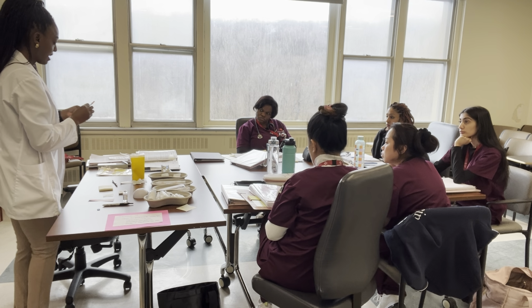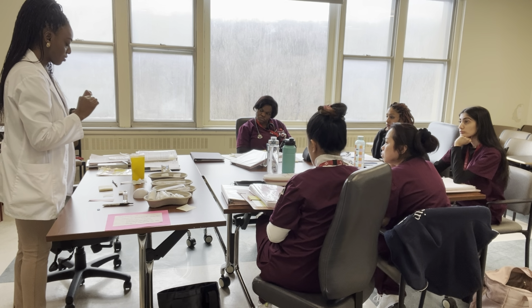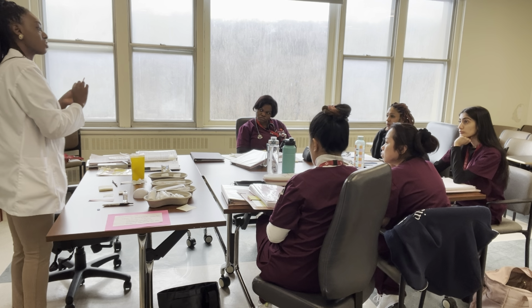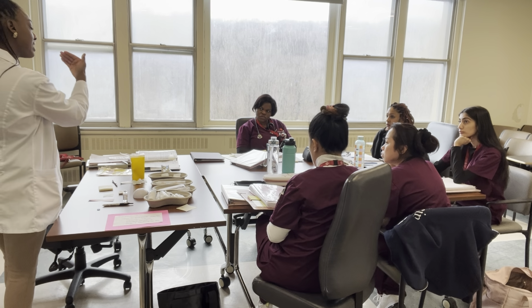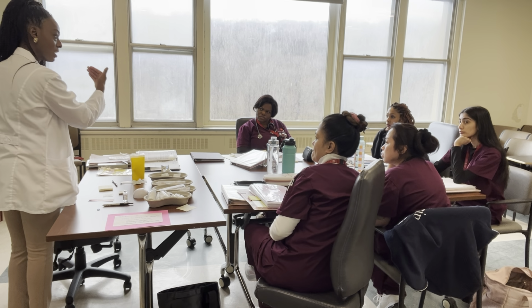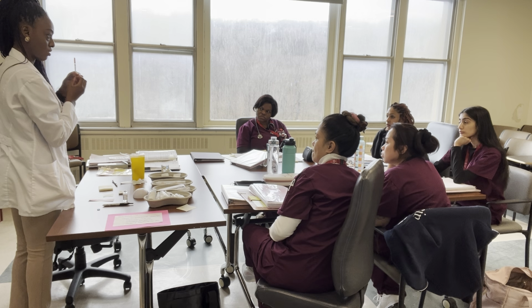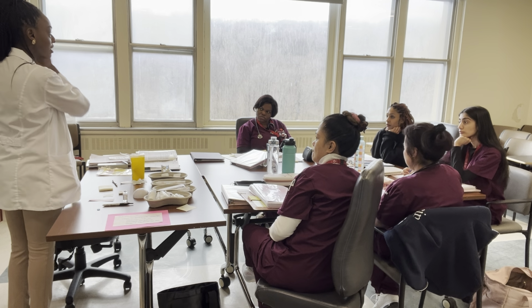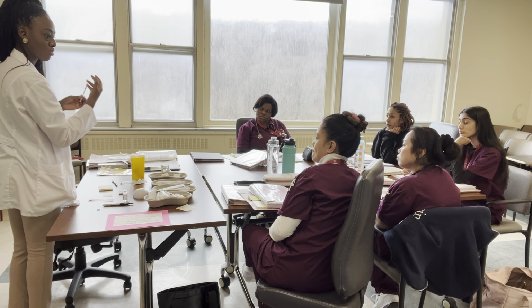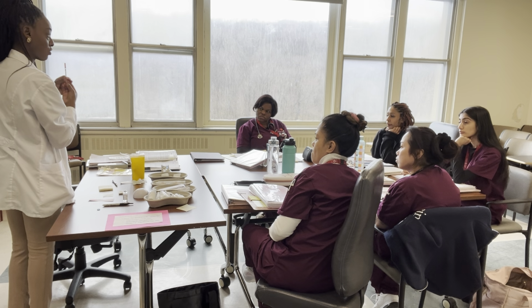And don't forget to check the calibration of the syringe. Make sure it is in units and how much. So this goes to 50 units. The calibration is the increments of how it's going up. Sometimes they're going up by 10, by 5. So in this case, it's by 5, so you know that it's in increments of 1. If it goes to 10, usually it's in increments of 2. Good? So this one's in increments of 1.